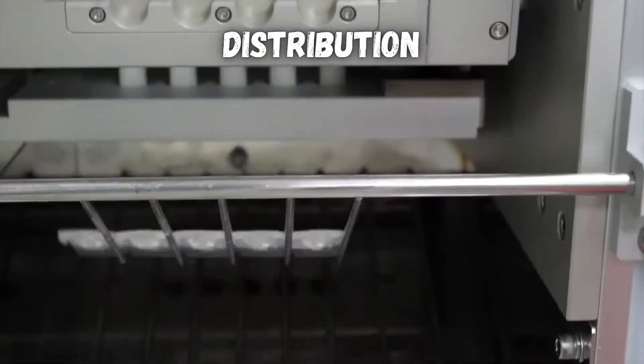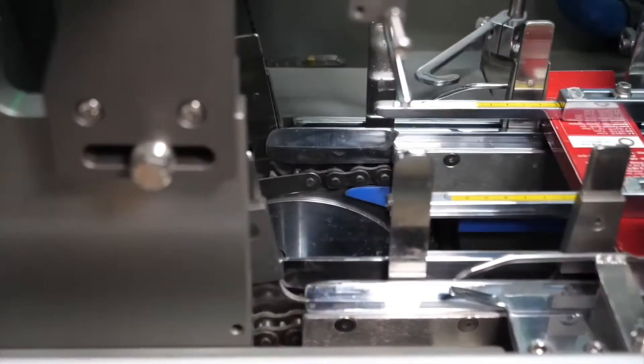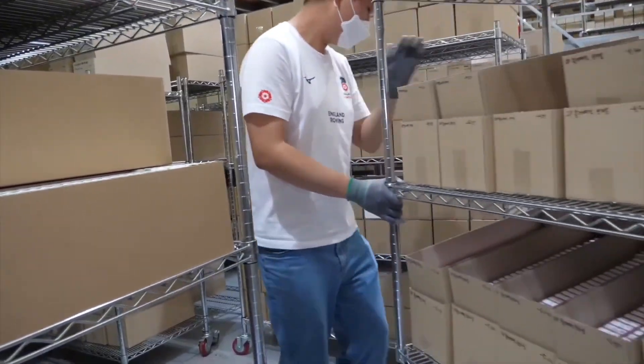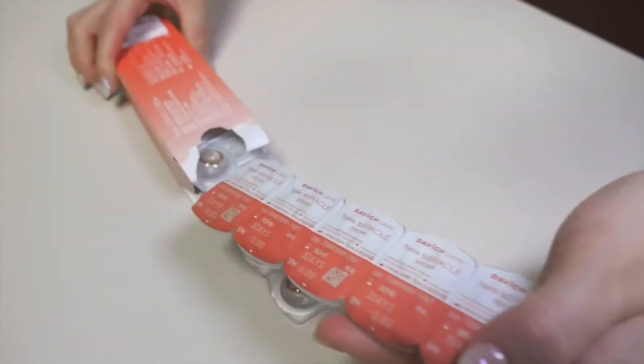The final packaged lenses are sorted, loaded into boxes, and then shipped off to optometrists, distributors, or straight to the end customer who is going to use them.